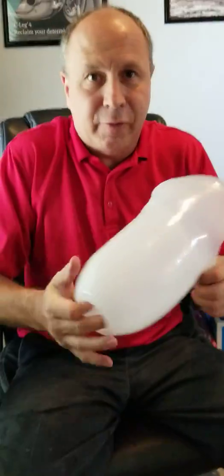This is a flexible inner liner, which makes my job in the adjustments a lot easier. Prosthetics are built based upon the components or characteristics of the leg. For example, if you say I want to buy a car, there are many different values of cars and every car is a little different — same thing with the prosthetic leg.